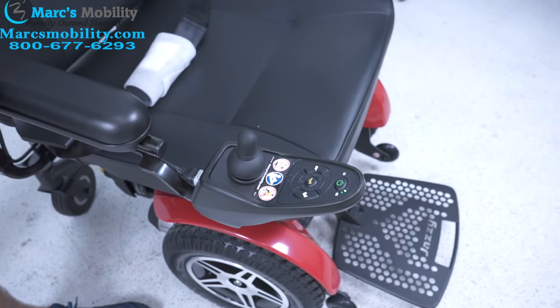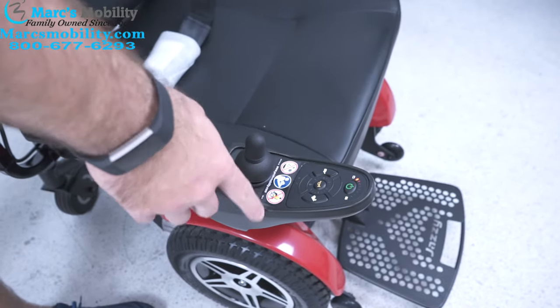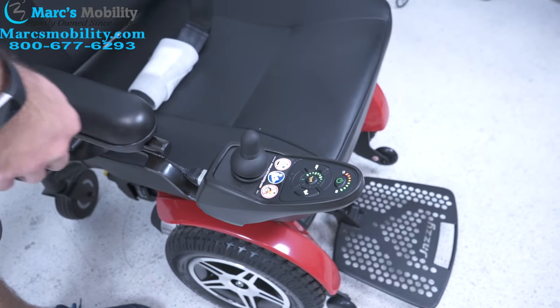That is caused by holding down the power button when you go to turn it off. So when it comes on and your lights are scrolling back and forth, hit the horn button twice and the lights will steady out. That's how you unlock the unit.